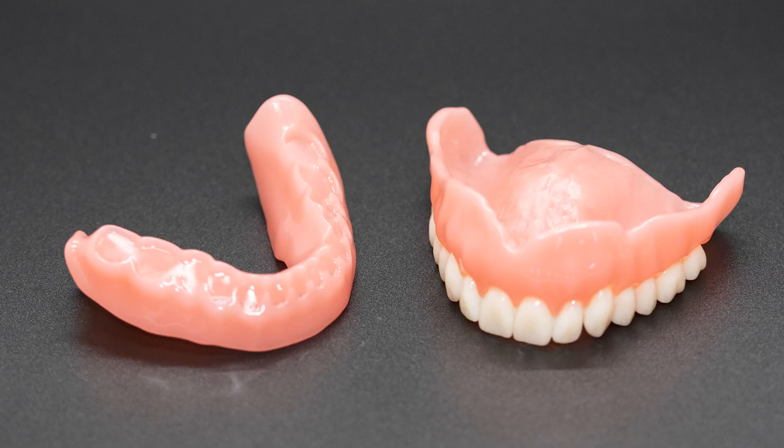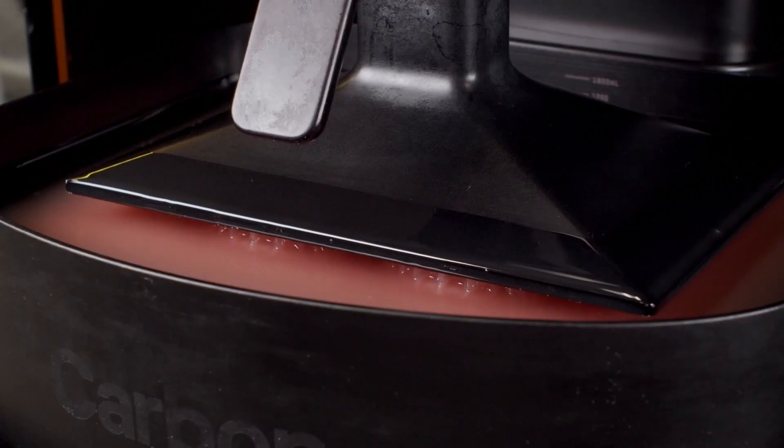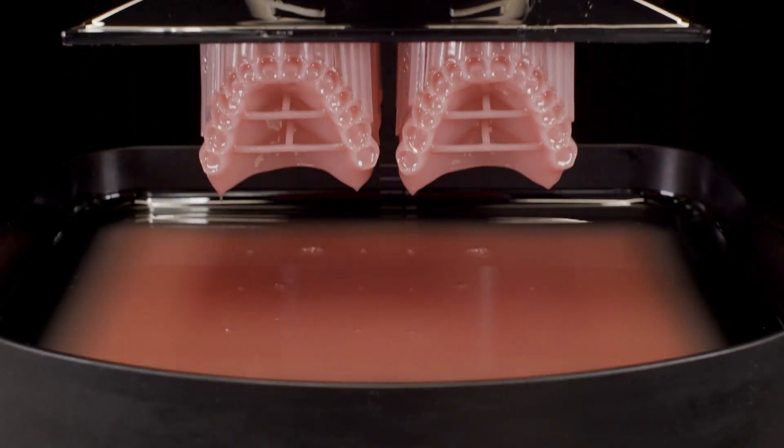The penultimate step when building a 3D printed denture. After the denture and denture teeth are printed, they must now be combined and bonded together.